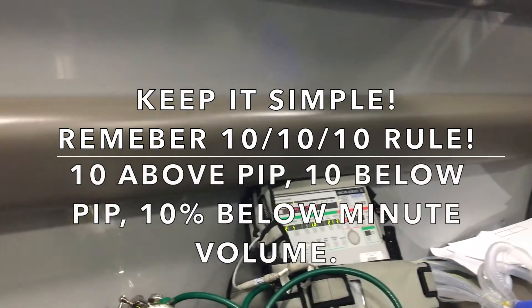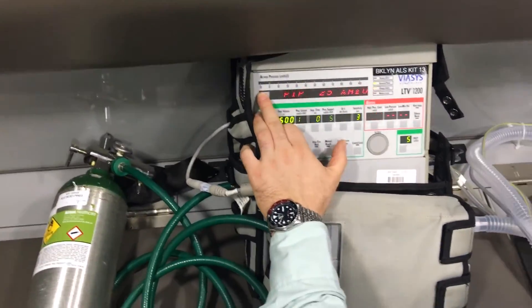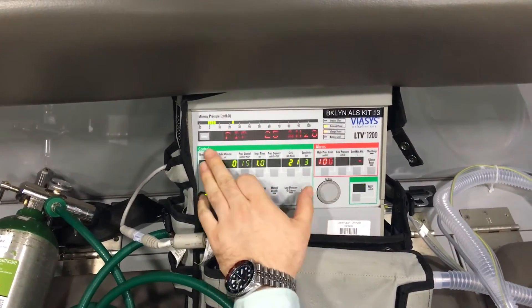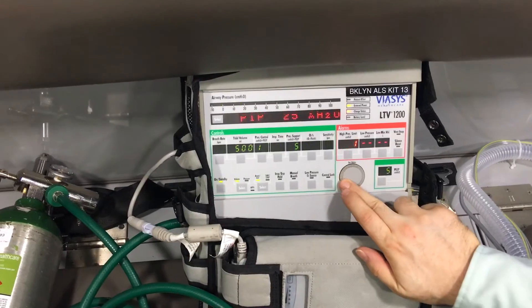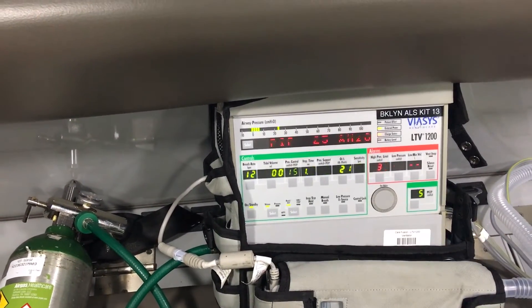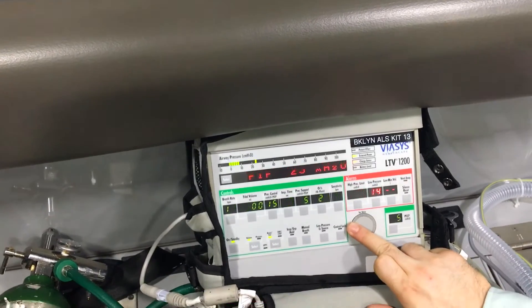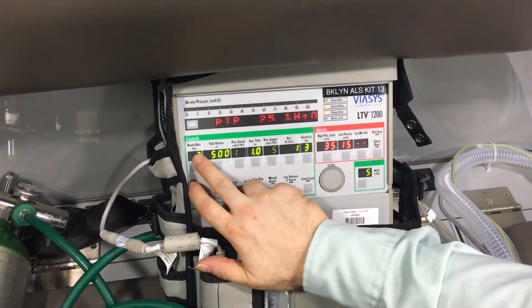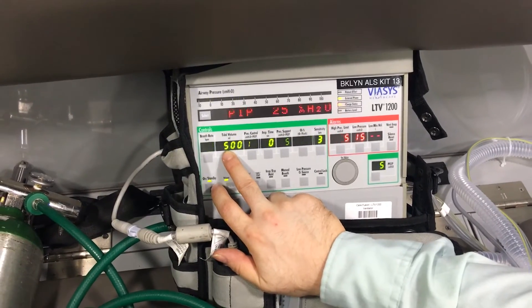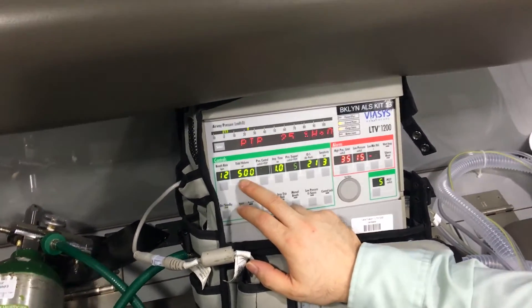I'm going to put your attention on the LTV1200. So if this was our hypothetical patient and we're cycling through his settings — in this present time, my peak inspiratory pressure is 25. So 10 above means the high pressure limit has to be at 35. Now low pressure is 10 below, so this has to be at 15. I'm utilizing 10 in this example. And for low minute volume — 12 times 500 is 6 liters, because 6,000 mLs converts to 6 liters. If we utilize the 10%, it's going to be 5.4 liters, and this is what we're going to set.